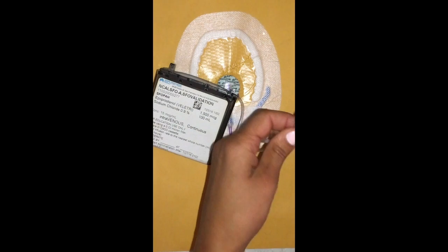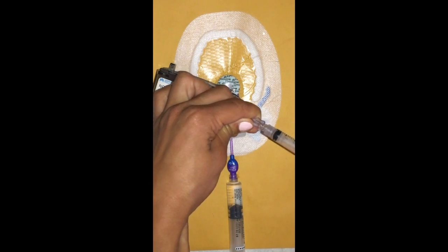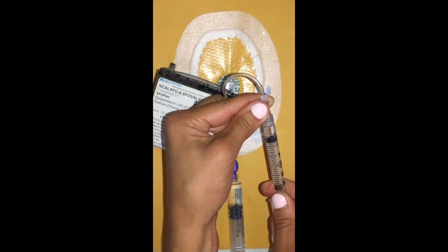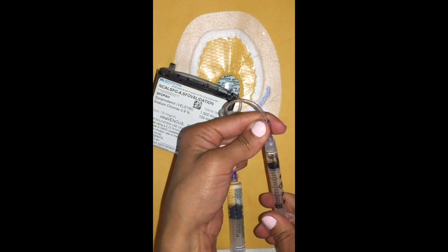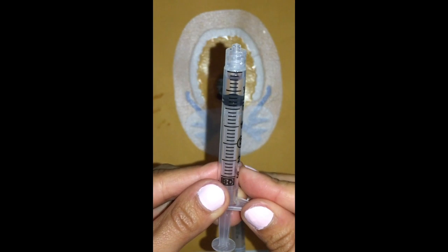The next thing we do is we're going to grab our patient's medication cassette. You will unscrew the red cap. You will scrub it with some alcohol. You're going to take another 3 ml syringe and attach that. And then you're going to slowly draw back your prime volume. So again, that's 0.64. So you're going to pull back. You can overshoot it because again, this isn't attached to anybody or anything at this time. Disconnect. Can put the red cap back on for now. And then you have your 0.64 mLs.